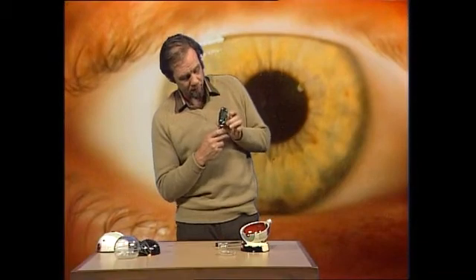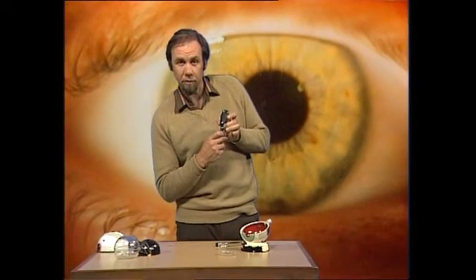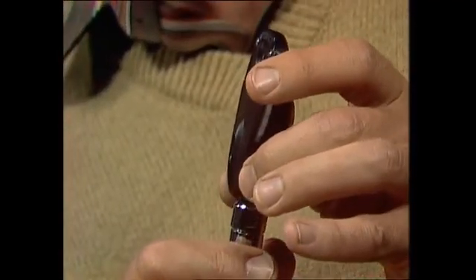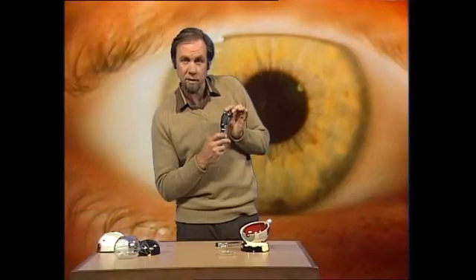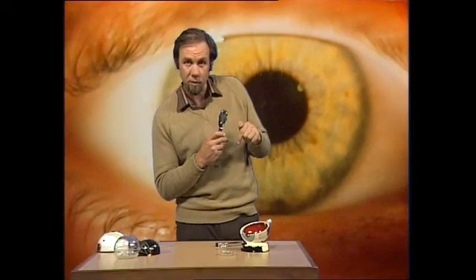He's got another little wheel down here which can be turned, and that throws in things like yellow filters and green filters and bits and pieces. But mostly it's the adjustment of that wheel that's important — to make sure the lenses of the ophthalmoscope and the lens of your eye allow him to get a very clear picture, so that you don't lose the function of your most important sense, and that's sight.